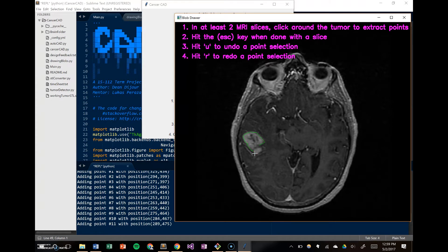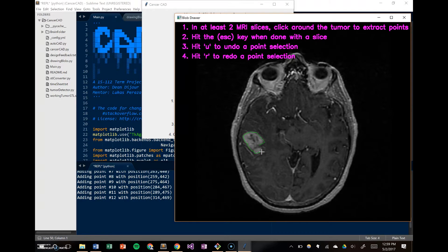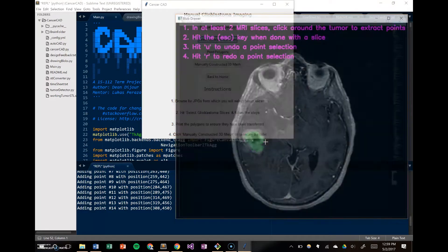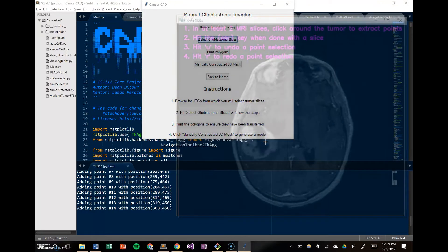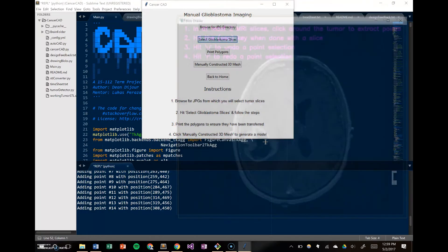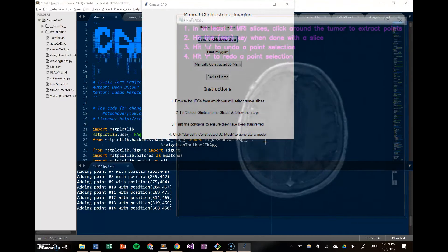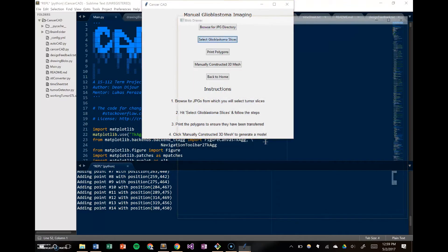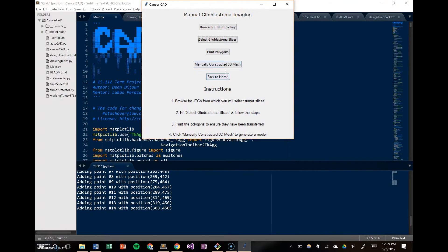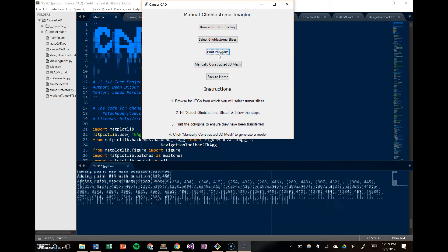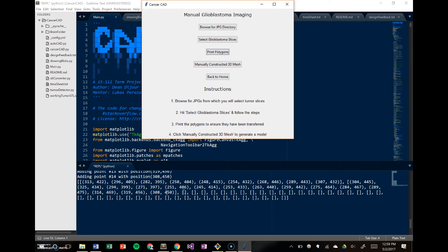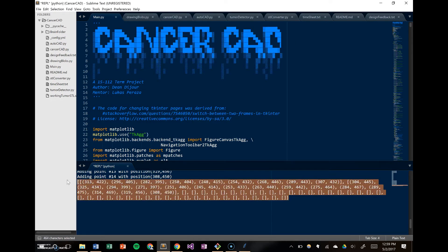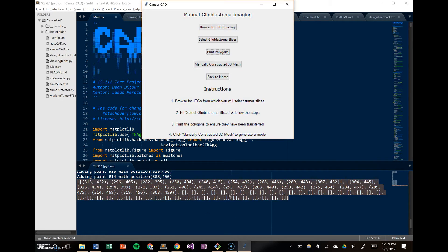As you can see, this is something that a doctor would want to take time to make sure it's precise, because when they build it up in 3D, it's meaningful to have the most accurate 3D model possible. So you go through every image, and then you can print your polygons to ensure that they've been transferred. It's essentially a 2D list of points, and you can see that there's a lot of empty 1D lists in here, because it was expecting polygon data, but we didn't give it any.